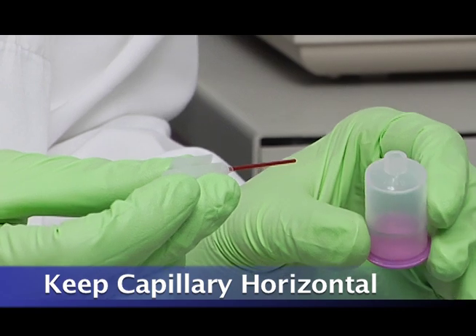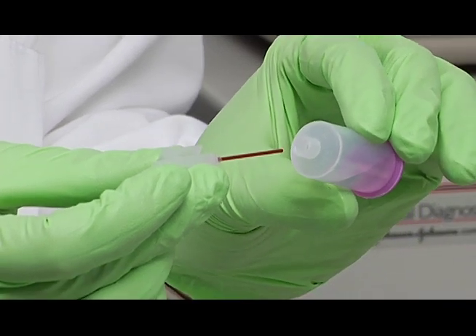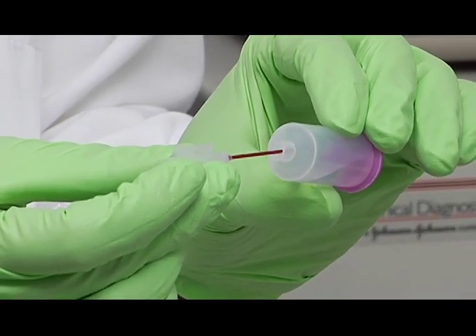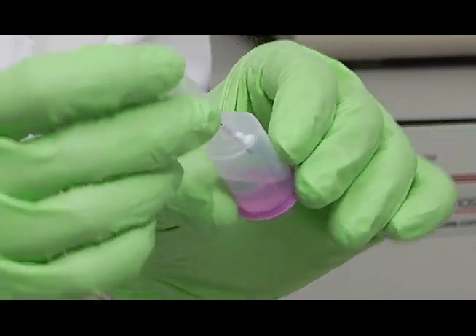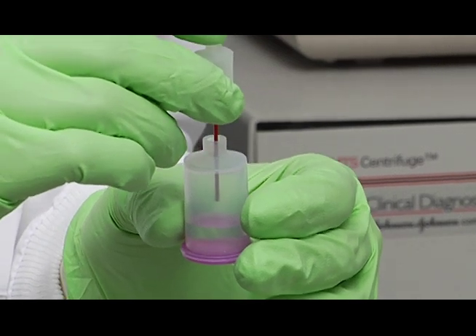And bring up your reservoir and tilt your reservoir so that the tip of the capillary tube goes through the hole that you made. And then you can put it upright like this.